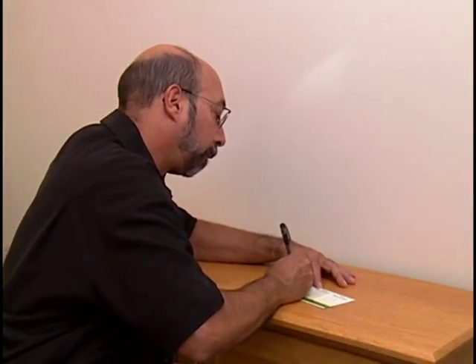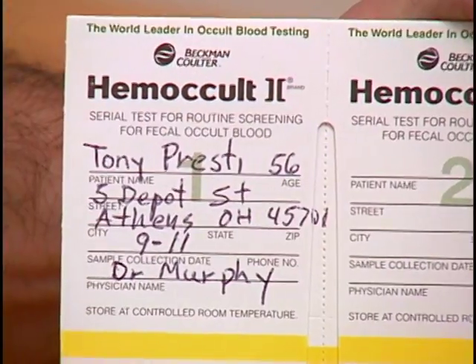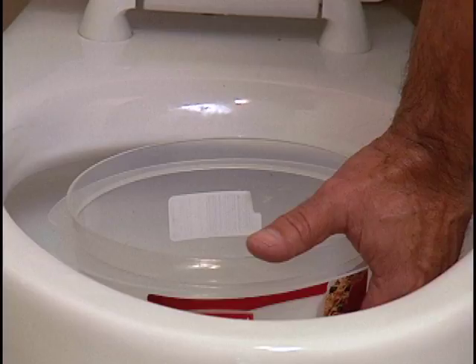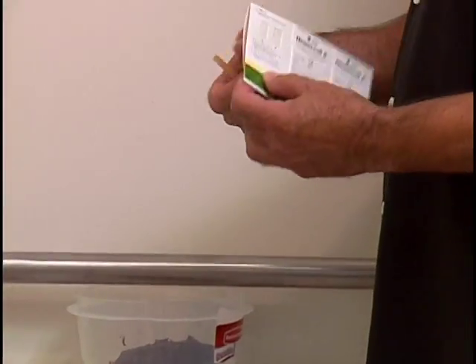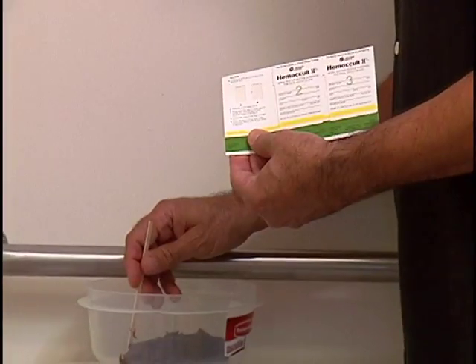First, fill in the collection date on the front flap of the first cardboard slide. If you are using a toilet bowl cleaner, remove it from the toilet tank and flush the toilet twice before proceeding. Use a clean, dry container to collect the stool sample. The sample must be collected in the container before it comes in contact with toilet bowl water. Allow the stool to fall into the collection container. Open the front flap of the first cardboard slide located on the left side of the series of 3. Use one of the wooden applicators to obtain a specimen from one part of the stool sample.